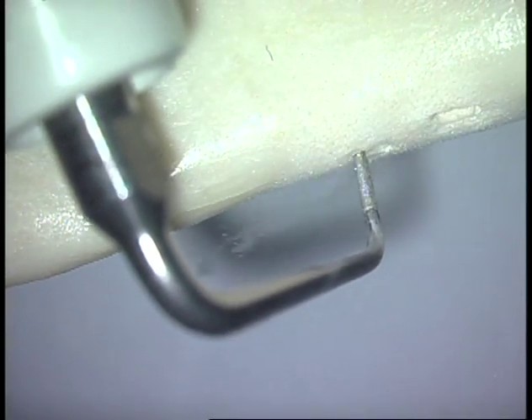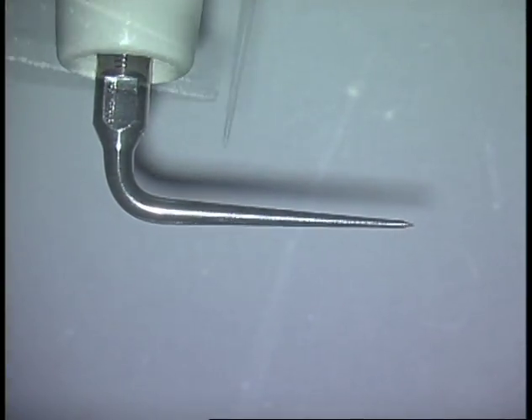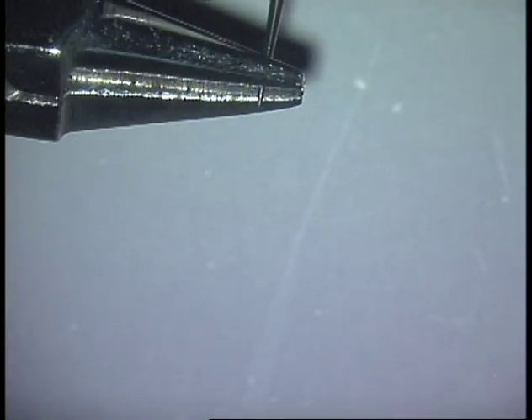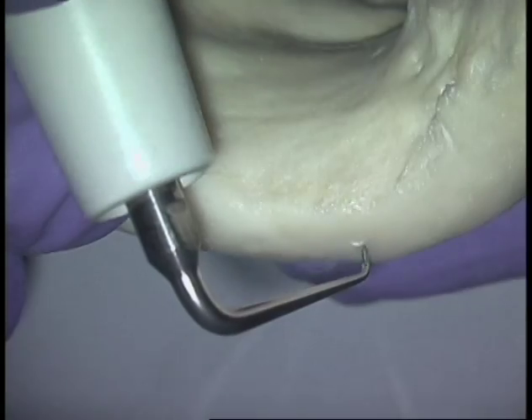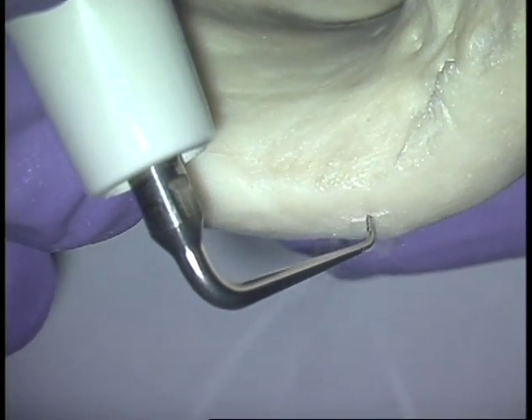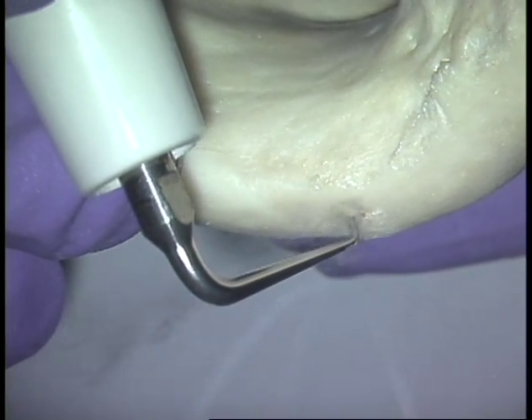Here you can see how well these tips cut into bone or tooth. Even the venerable CT4 tip can be bent this way, provided it was purchased after January 1, 2011. All tips after that date have been specially treated with a proprietary treatment that allows this sort of bend without the problem of breakage.